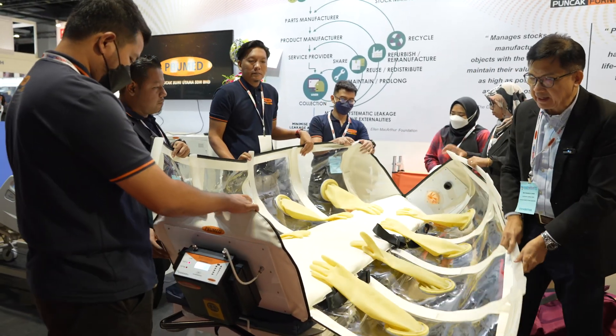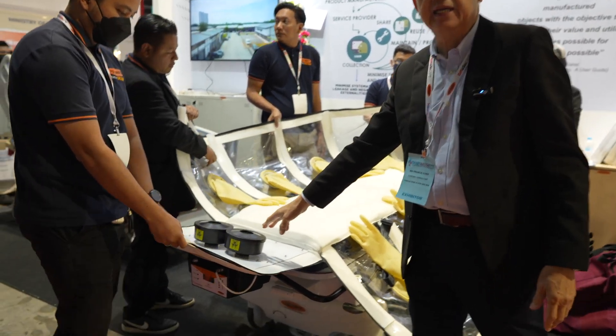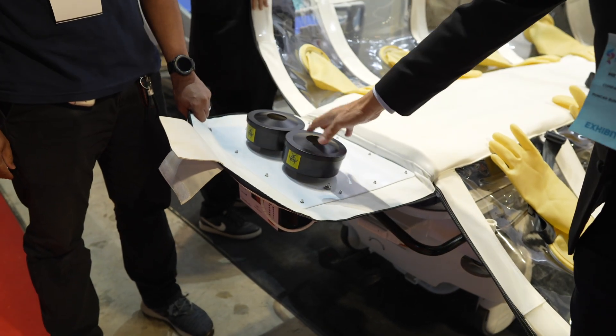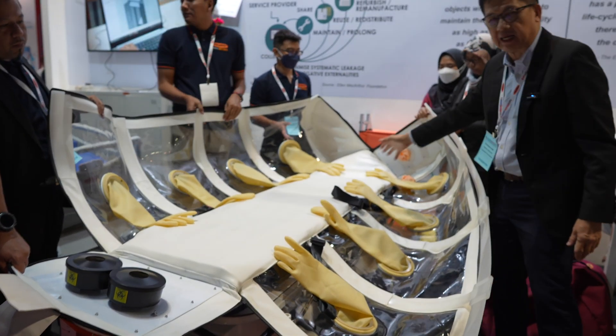When we open it up, we carry the patient in. You can see there are two HEPA filters here — these are the outlet filters that filter all the air inside going out. There is also one HEPA filter at the back where the air comes in.